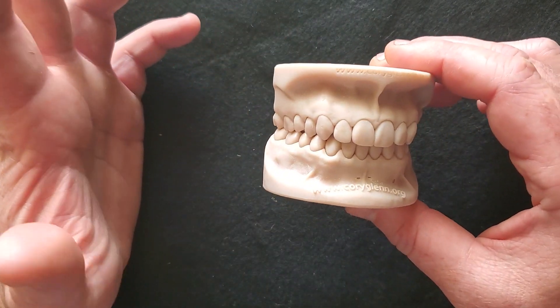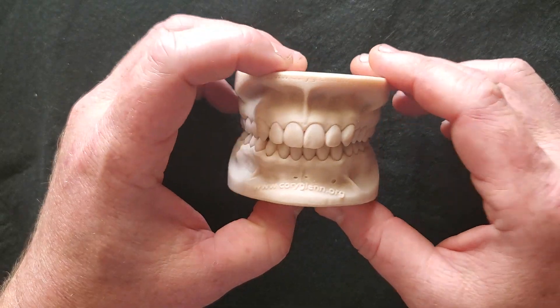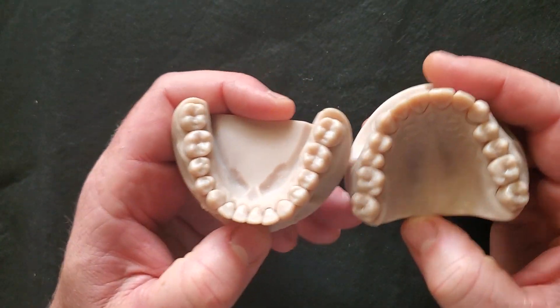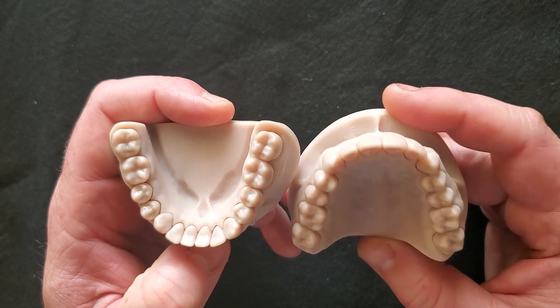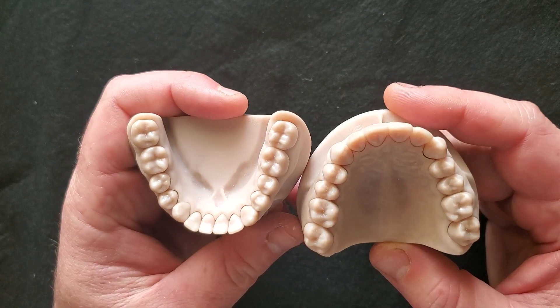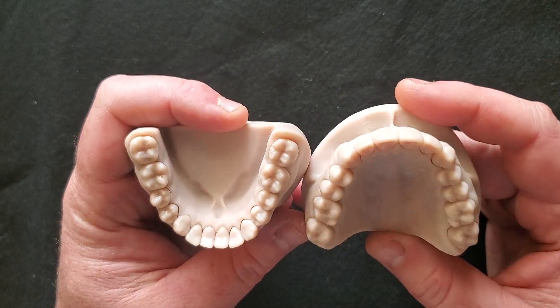They're going to have a really good fit — just as good as what my dental school Typodont was. I'll show you the way this is designed. Shout out to Dr. Kit Kaibok, whose teeth these actually are. So you'll be prepping on a wonderful prosthodontist's teeth when you use this.